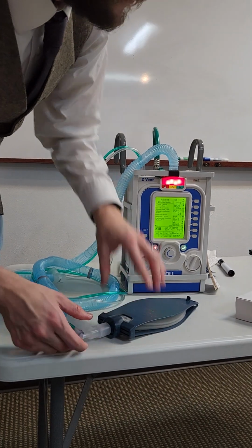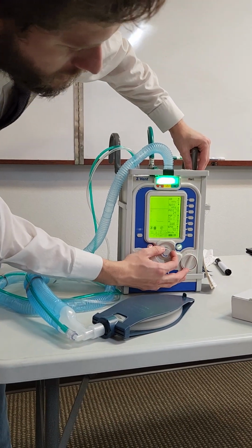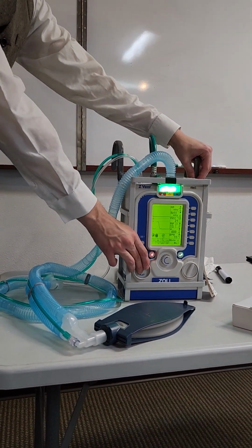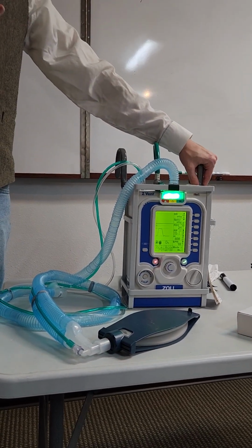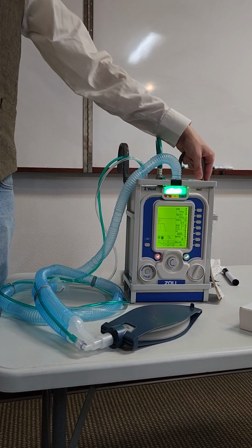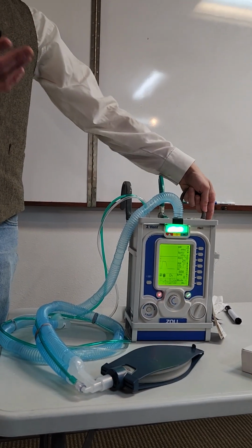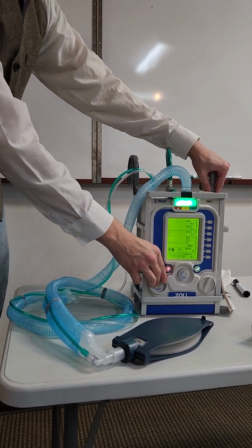So if we do go back to that masked CPAP, we ventilate for it. So we can change it now. Let's look at the bi-level, which is just BiPAP. All the settings are essentially the same. The difference is that it just delivers the breath, the Zoll representative said, more smoothly. So it's a more pleasant experience. In terms of pleasant, I don't think having BiPAP or CPAP on you would be very pleasant, but she said it's easier on a patient to be in the bi-level setting.